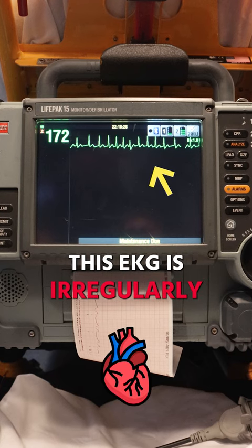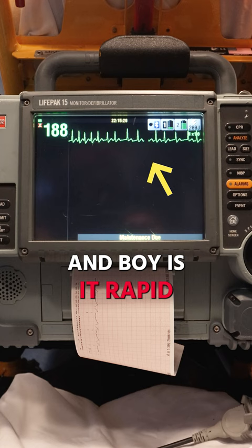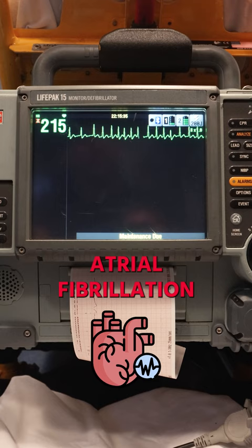This EKG is irregularly irregular, and boy, is it rapid. What we're looking at here is a rapid atrial fibrillation. So this would be what we call an uncontrolled AFib.